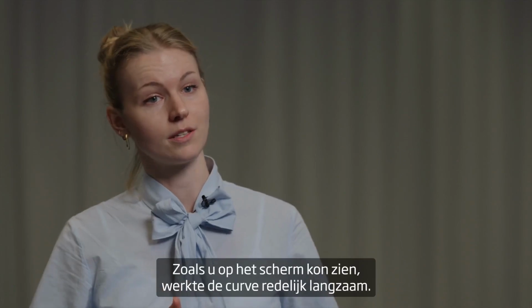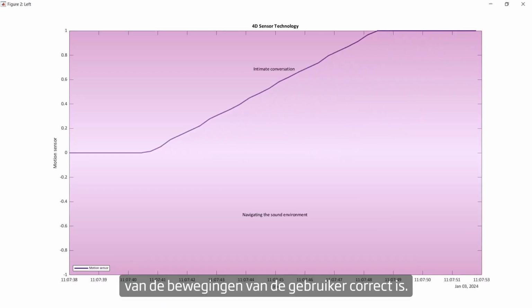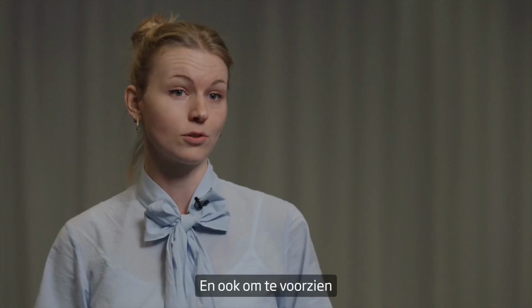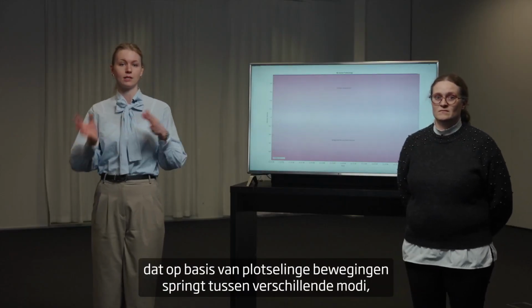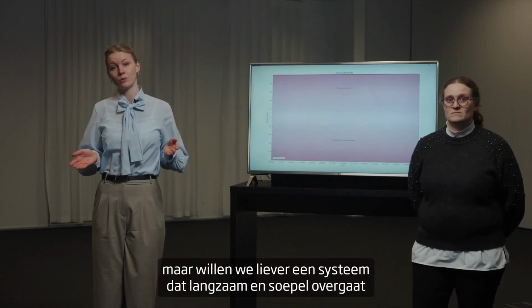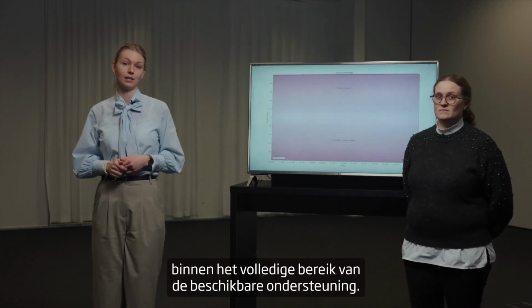As you could also see on the screen, the curve moved fairly slowly. And this is done by design, as we need to ensure that the interpretation of the user's movement is correct. And also, to provide an optimal sound experience, it's not desirable with a system that jumps between stages just based on sudden movements, but rather we would like to have a system that slowly and smoothly transitions within the entire range of available help settings.